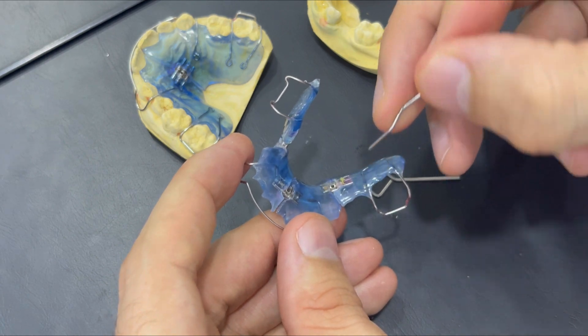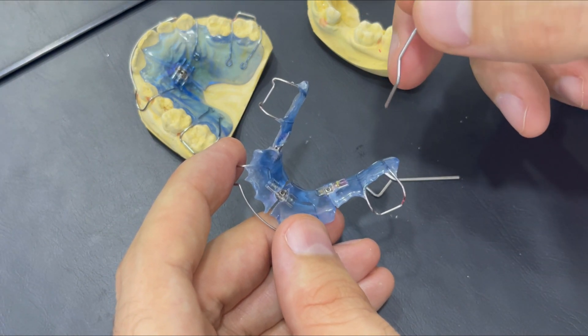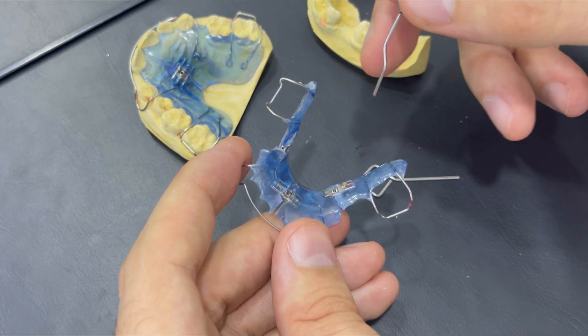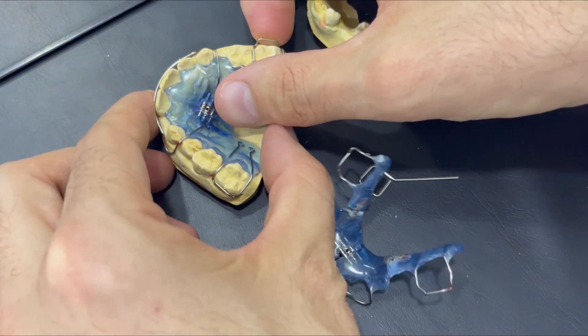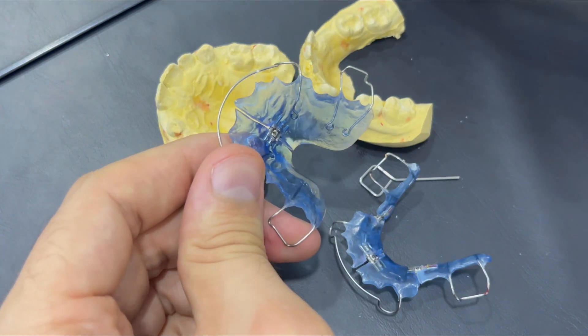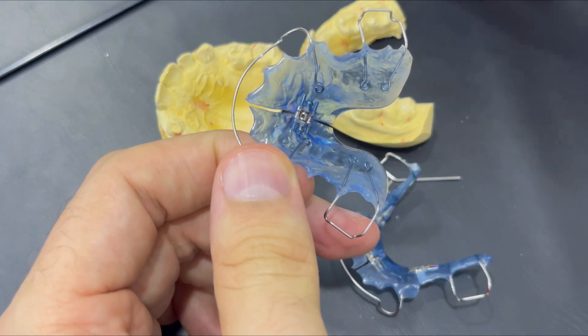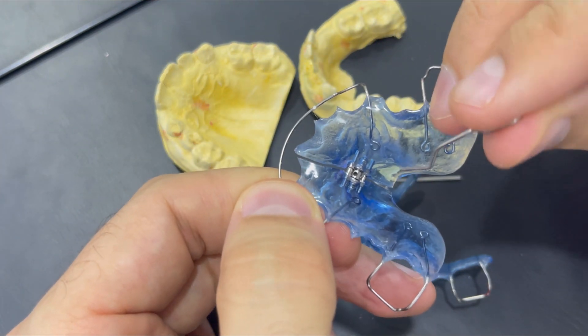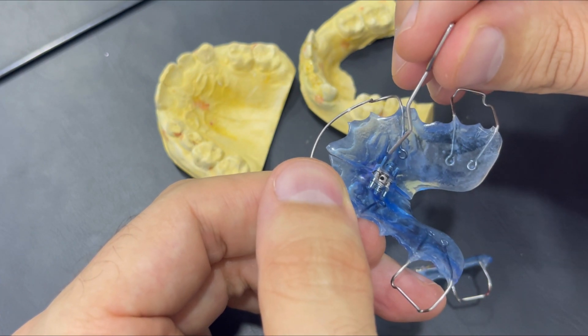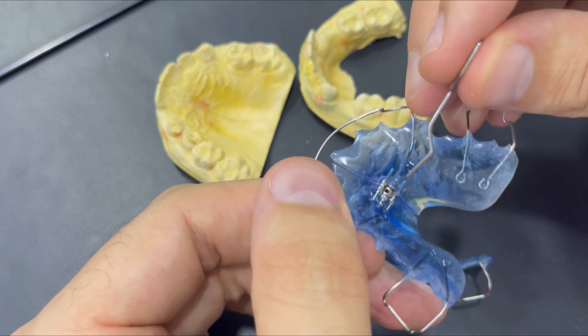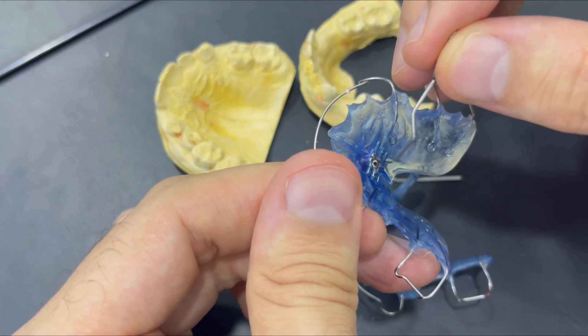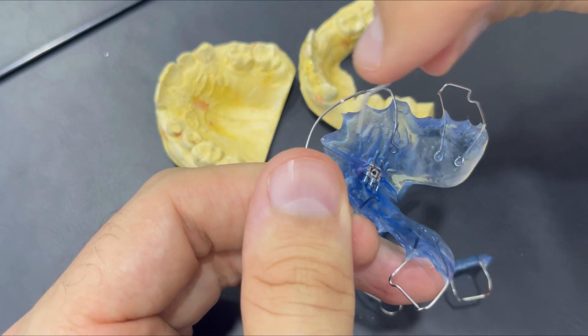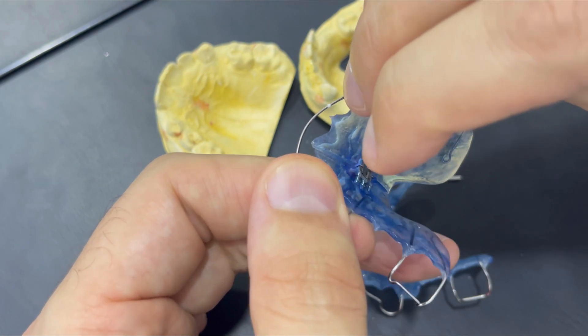In this time, the patient should be advised to wear the device as minimum as 16 hours per day. Otherwise with expanding, it will not be fit. For the maxilla, it's the same concept with the lower appliance. There is a hole in the middle. We insert it and creating space as well. Same principle.